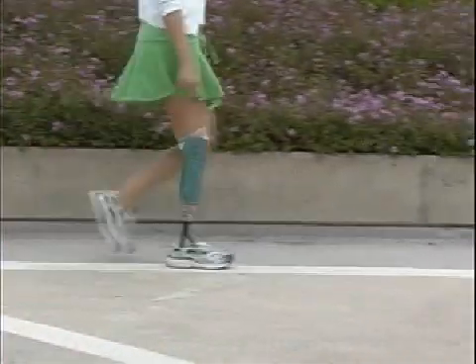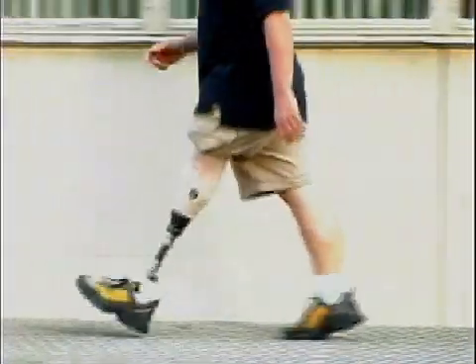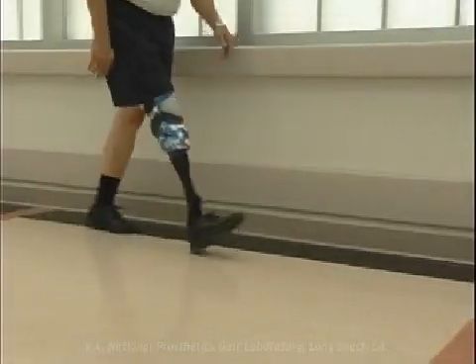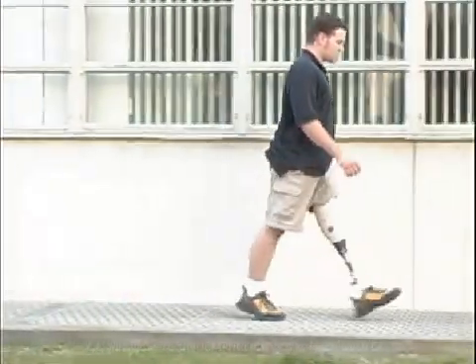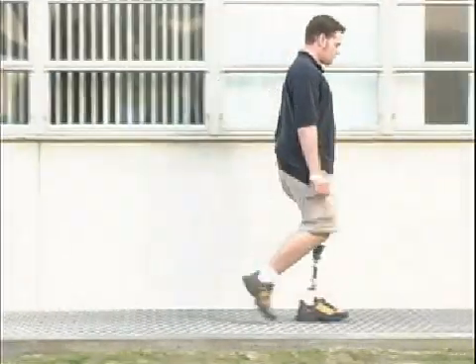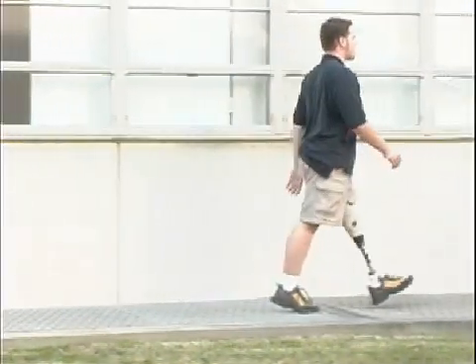This angular posture of the prosthetic socket, in conjunction with a deliberate anterior translation of the socket relative to the foot, generally succeeds in encouraging tibial progression. It does not, however, result in normal knee flexion during stance, which is invariably significantly less on the amputated side than on the sound limb.